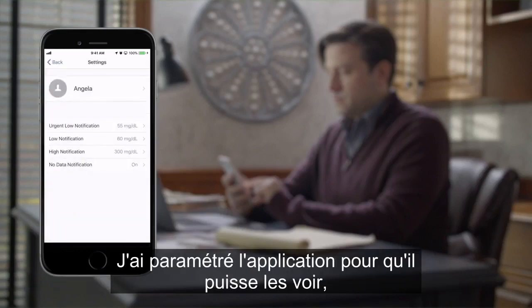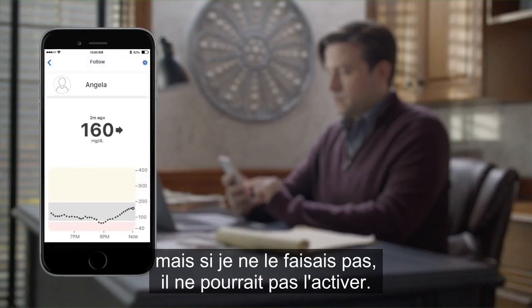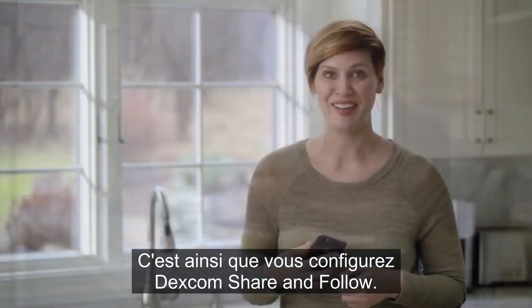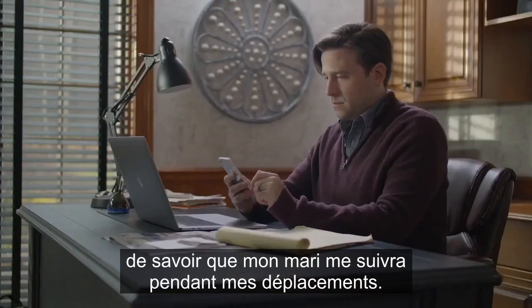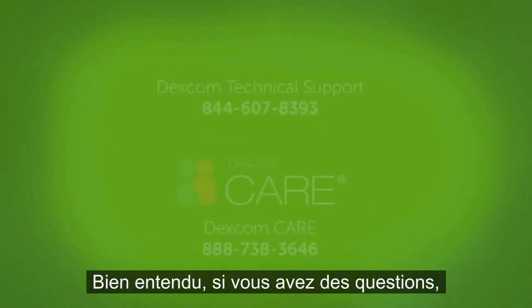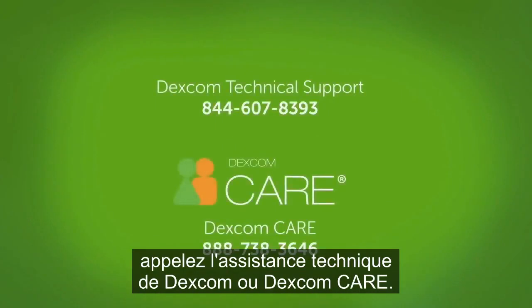The only thing the follower can't change is whether they see the sharer's trend graph. I set the app so he can see my trend graph, but if I did not, he could not turn that on. And that is how you set up Dexcom Share and Follow. It really offers me peace of mind to know my husband will be following me while I travel. Of course, if you have any questions, call Dexcom Technical Support or Dexcom Care.